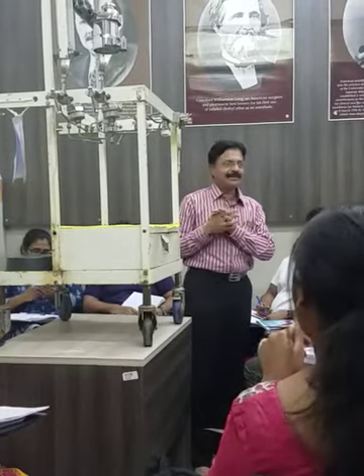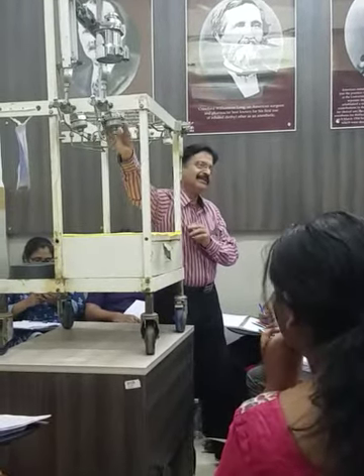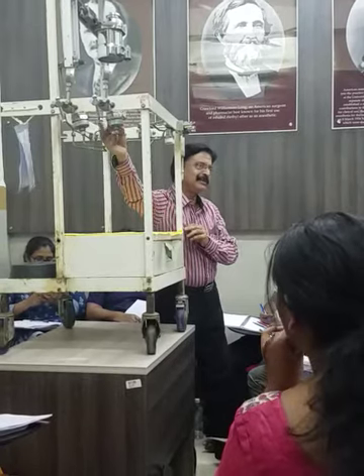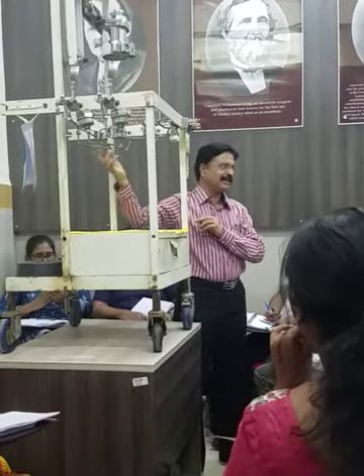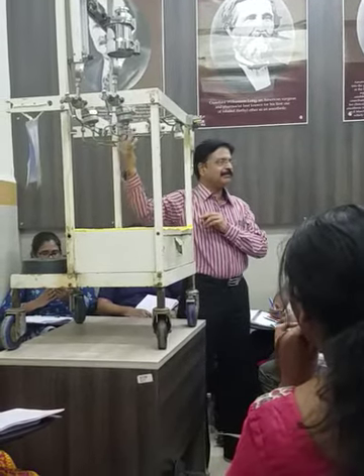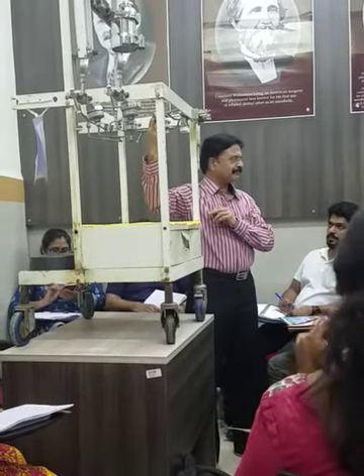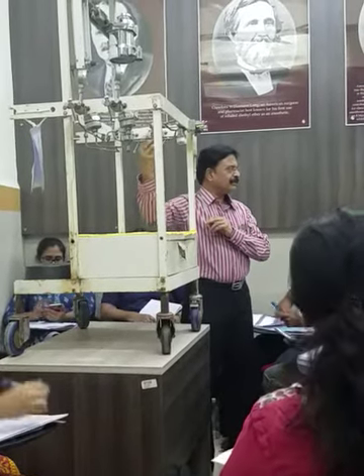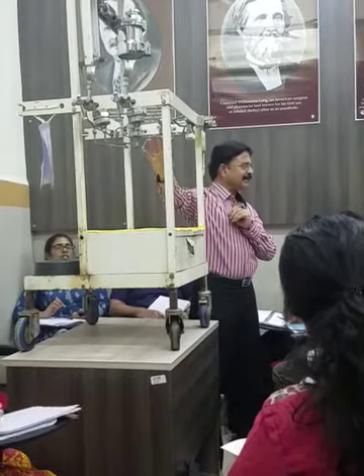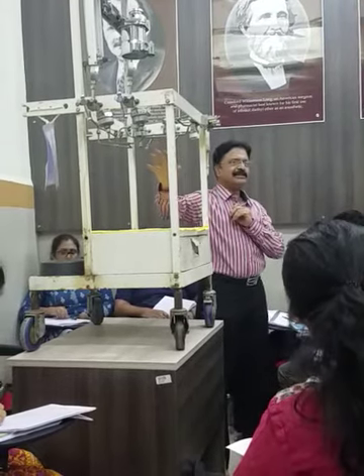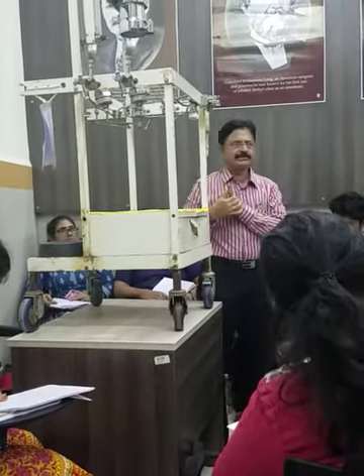But many of you might not have seen these machines. So these are the pressure regulators — there is one pressure regulator here and one pressure regulator here. Up to the pressure regulator you have the high pressure system. The cylinders, the yoke assembly, and the pressure regulator — these three are the parts of the high pressure system.